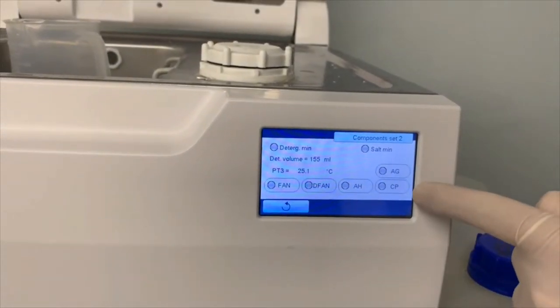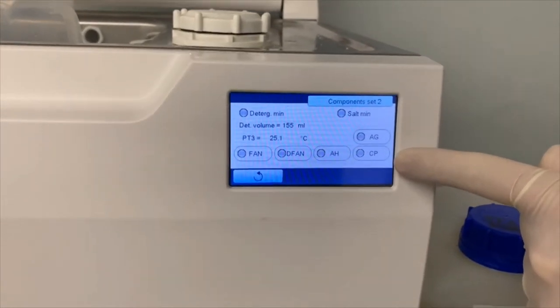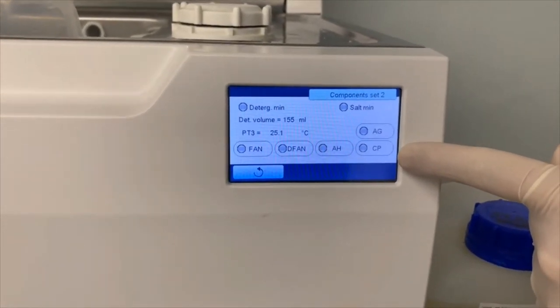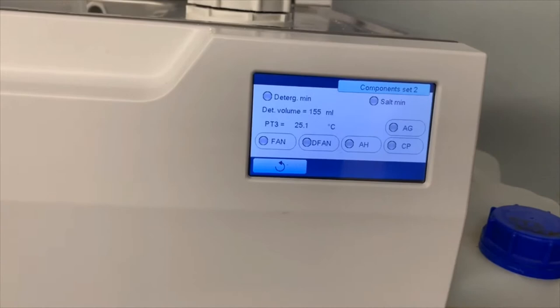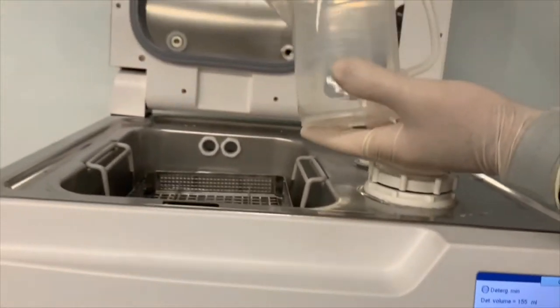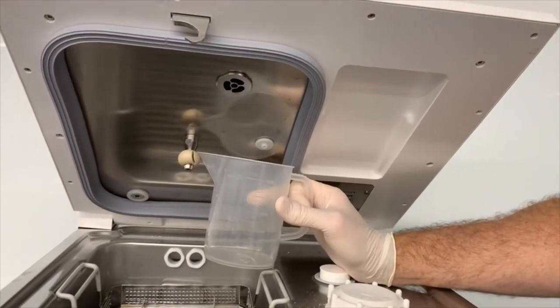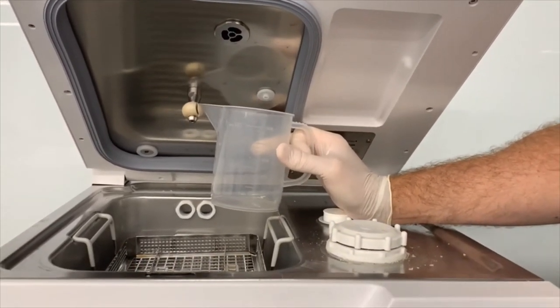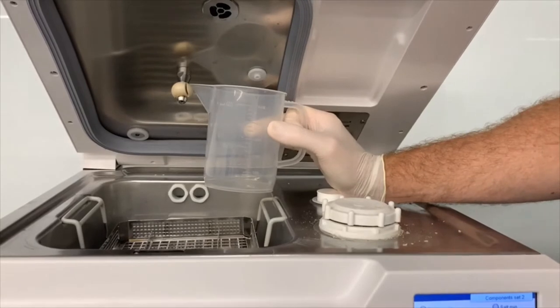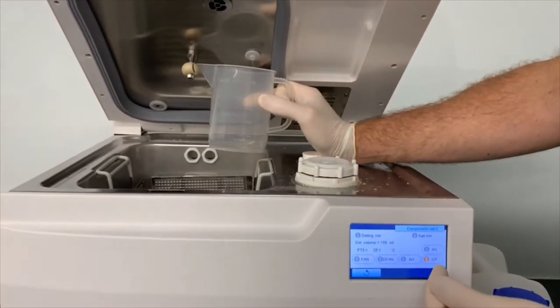In here we've got this down the bottom right CP. It stands for chemical pump. So that's what we want. I don't want to run it yet. What we need to have is our cup ready underneath this exit port and using one hand, you can just hold the lid on an angle, holding that cup in place, and press CP.